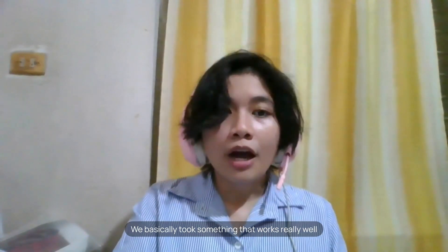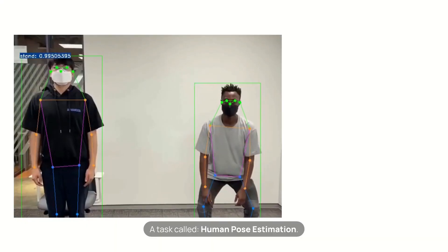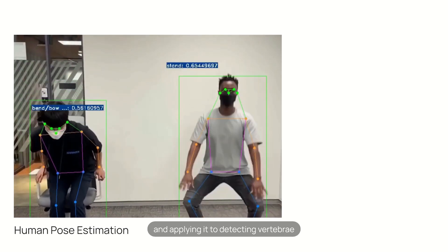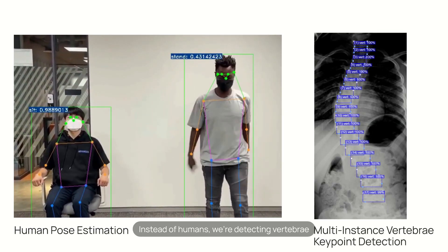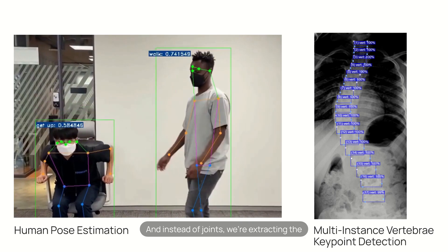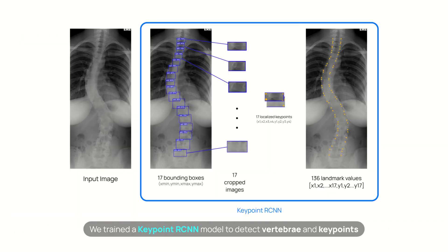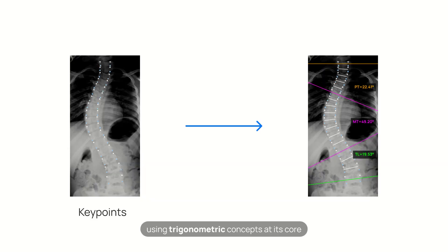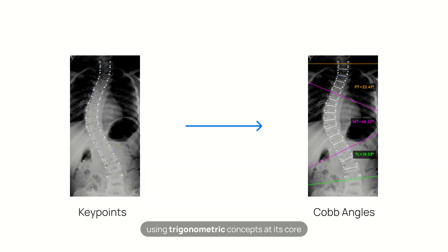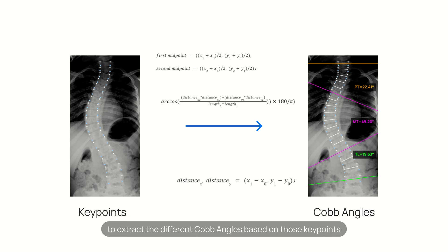Here's how it works. We took something that works really well for detecting human poses — a task called human pose estimation — and applied it to detecting vertebrae. Instead of humans, we're detecting vertebrae, and instead of joints, we're extracting the four corners of each vertebra. We trained a Keypoint RCNN model to detect vertebrae and keypoints, then created a Cobb Angle measurement algorithm using trigonometric concepts to extract the different Cobb Angles based on those keypoints.